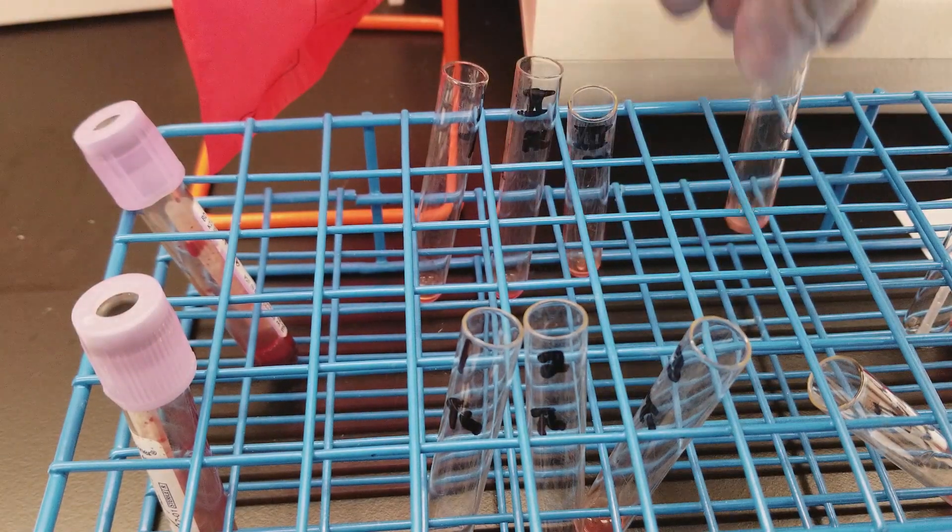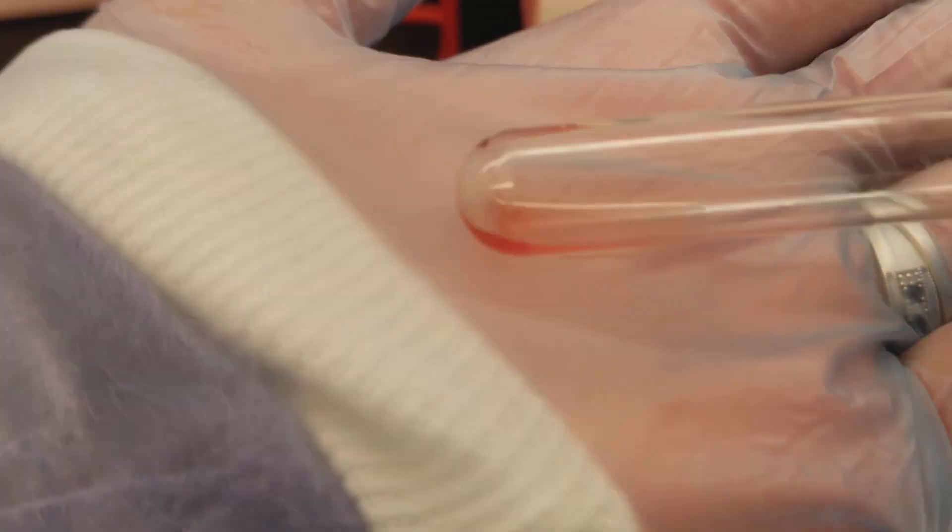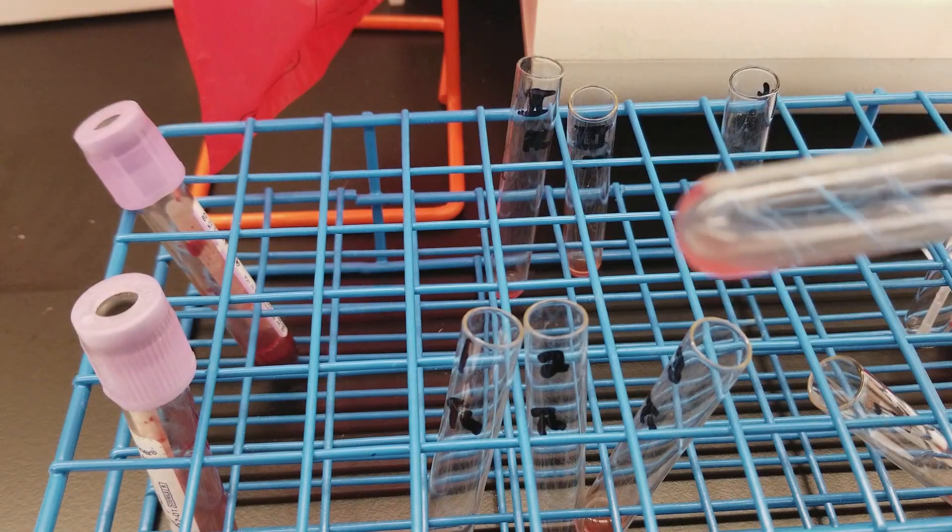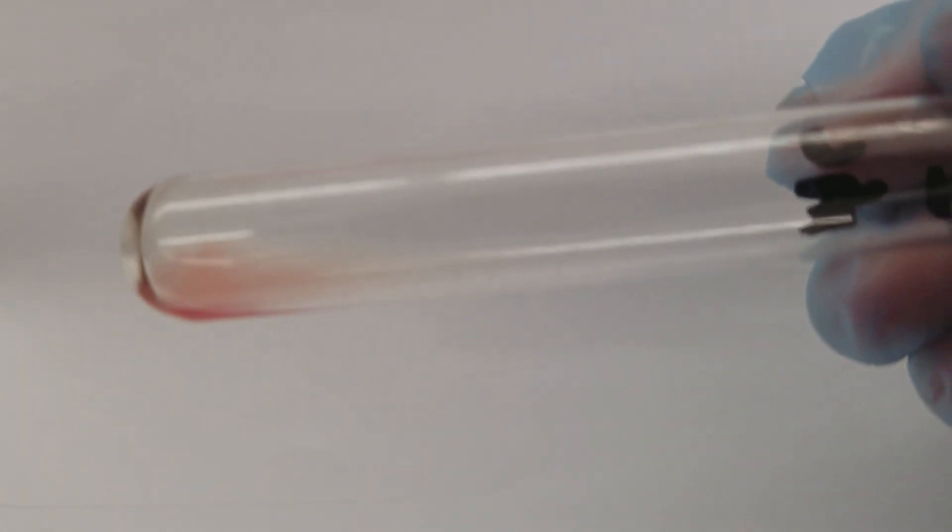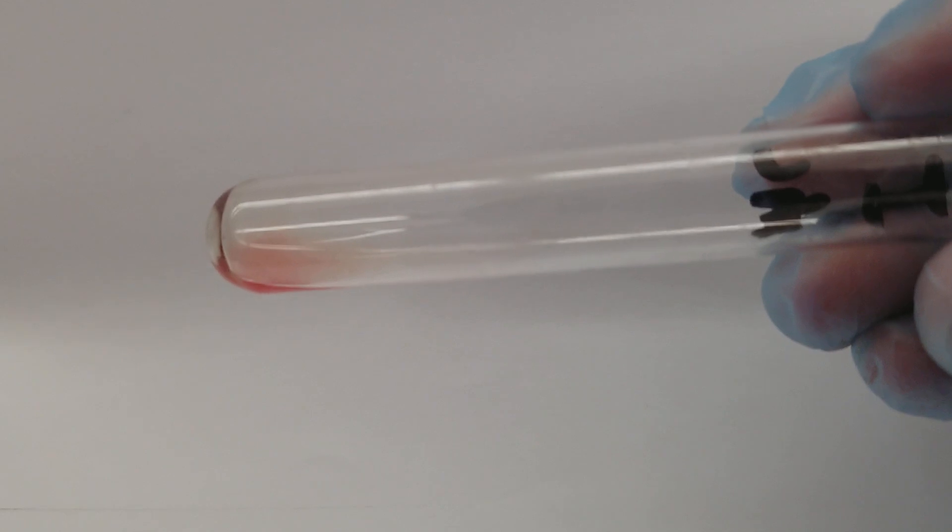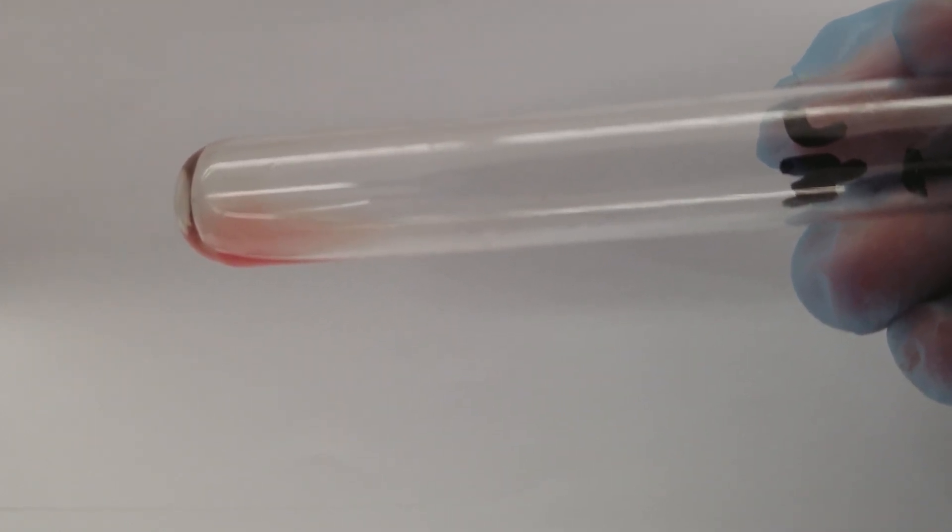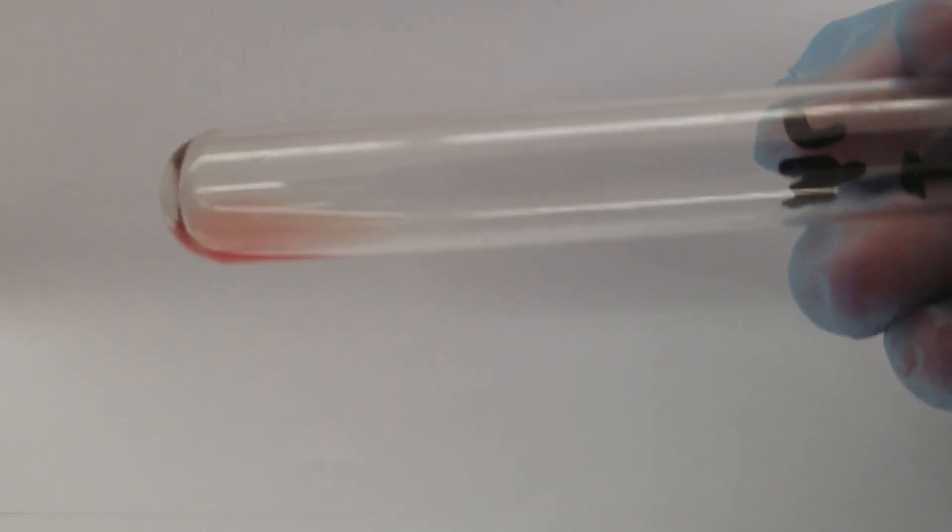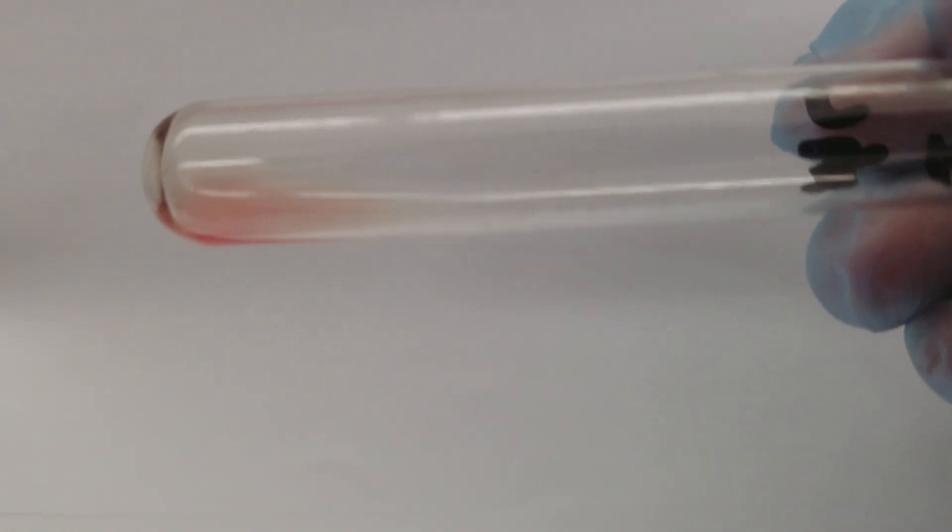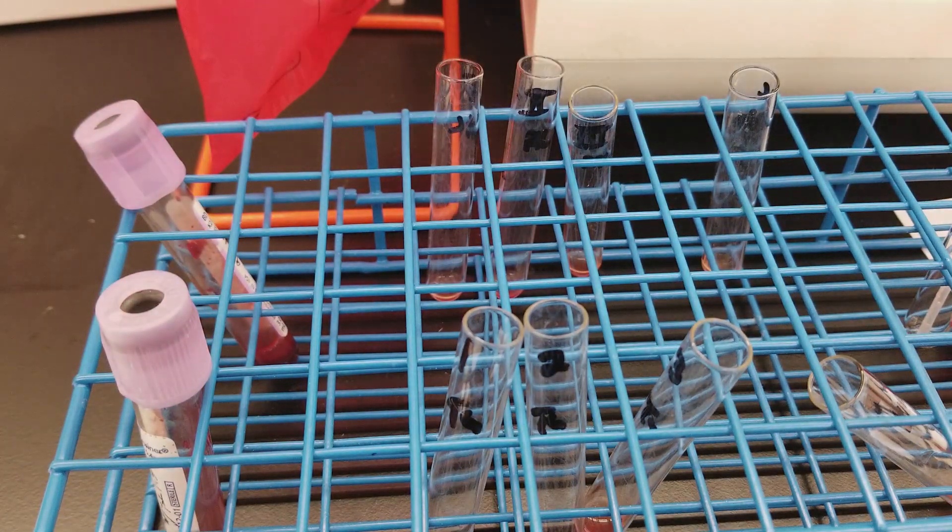Okay, so this is cell three and the auto control and those are negative. So let's take a closer look at cell one since last time we knew on this patient that they were really small. Yes, there are agglutinates in there. It's very hard for my camera to focus, but you can kind of see those dots. So last time we said there was a one plus. This is now weak. Okay, it's very hard to see.